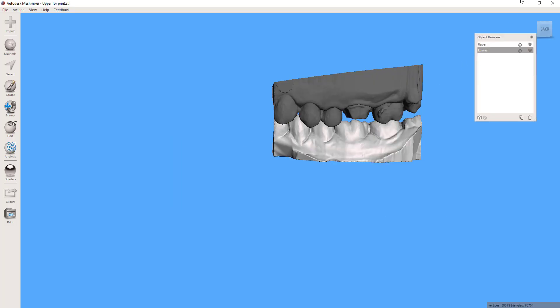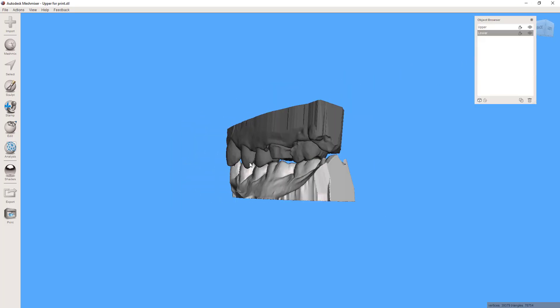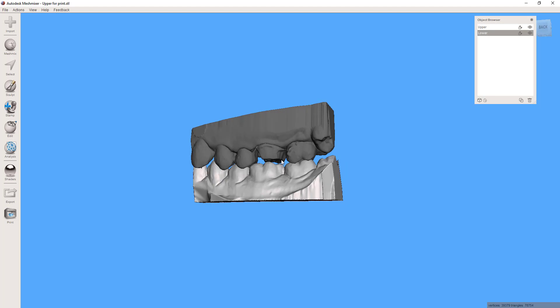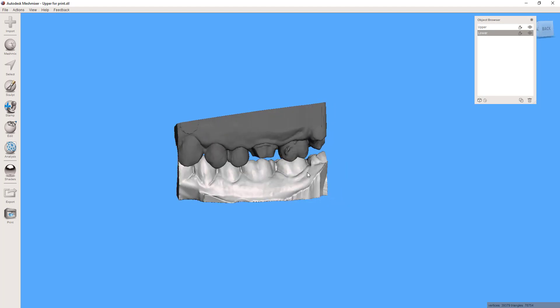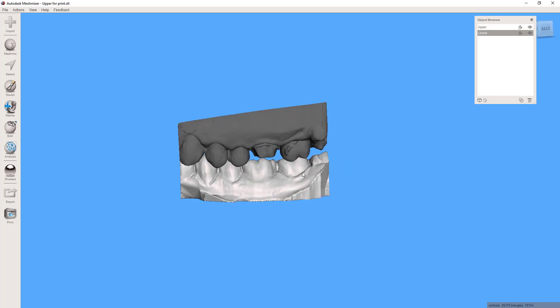Hey, this is Corey Glenn and I'm going to show in this video how to use the hinge articulator that I've developed so that you can add this to your models and make them actually be able to articulate.